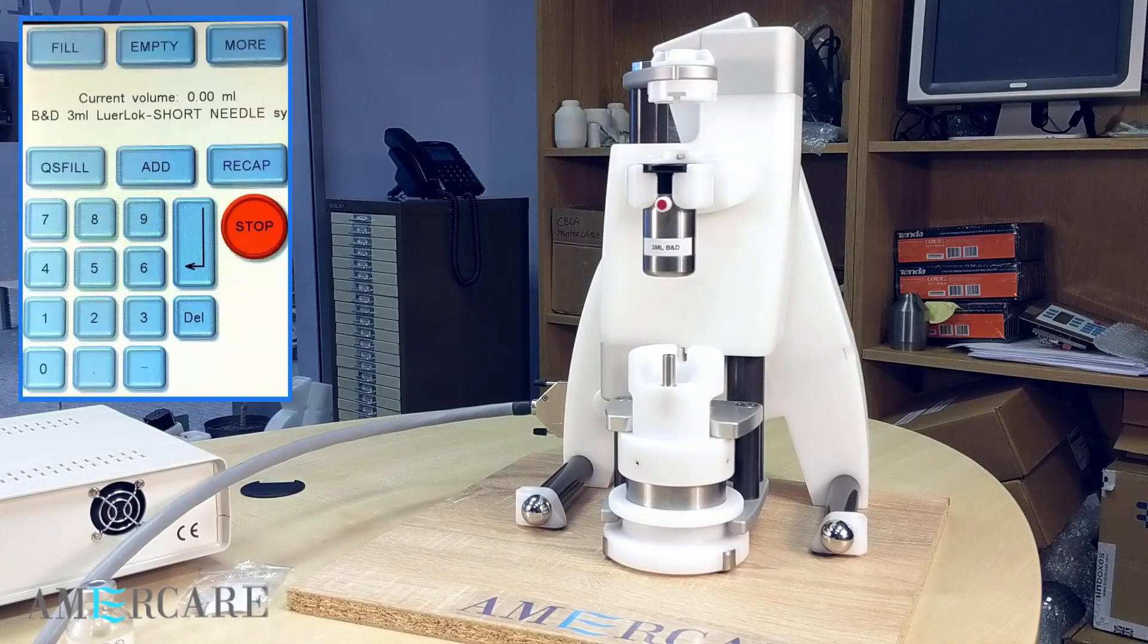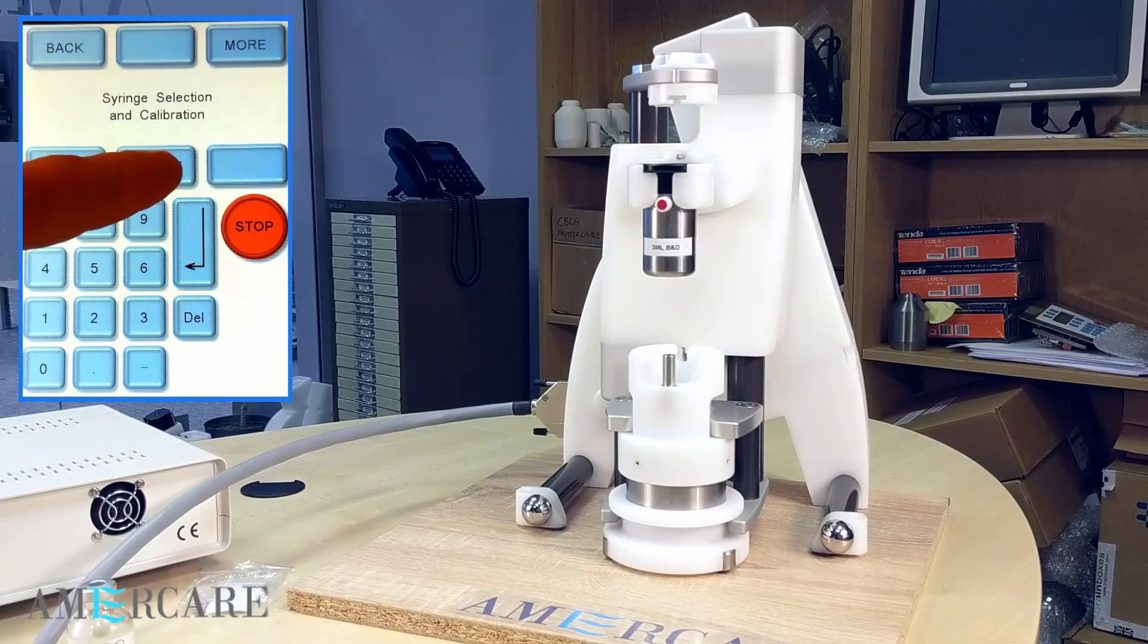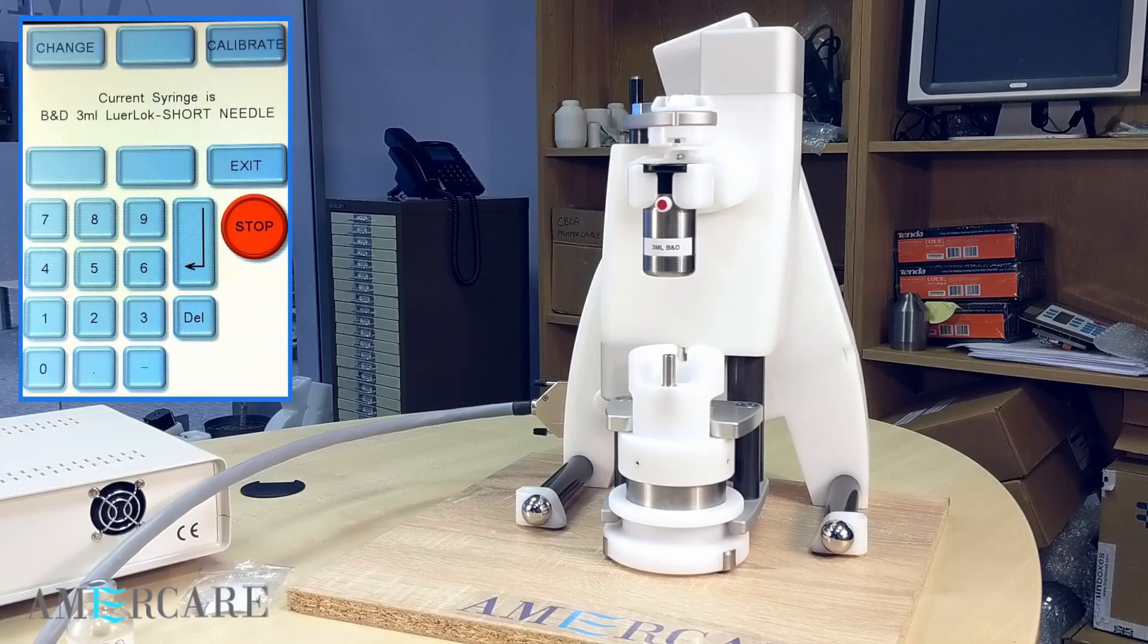The unit can accept a whole range of syringes. To change, press more and more again and then select. Press change.